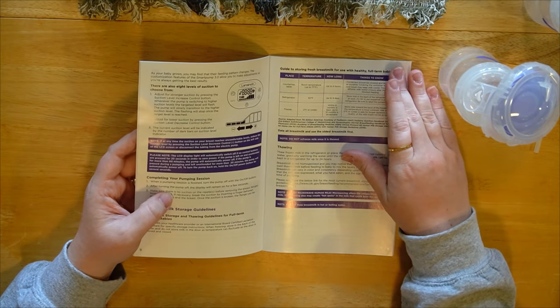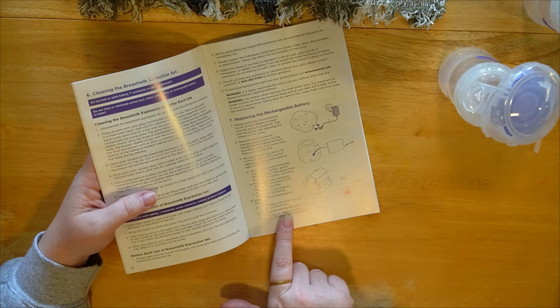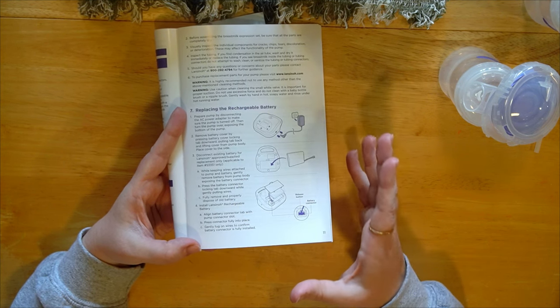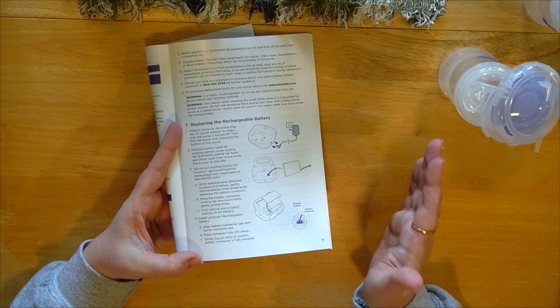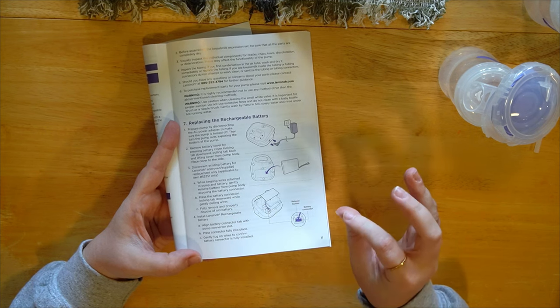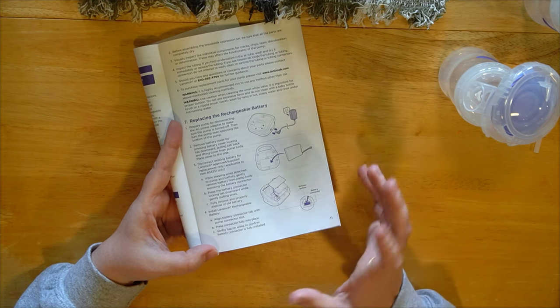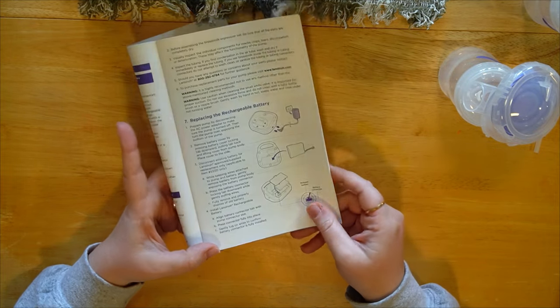Those are just good things to know so you don't think something's wrong. Also I was very impressed — the backing where the battery is placed is intentional because you are able to replace the battery if need be. I have not seen anything quite like this. There are a lot of rechargeable battery pumps out there but allowing easy consumer access to replace the battery — that is top notch. Love to see it.